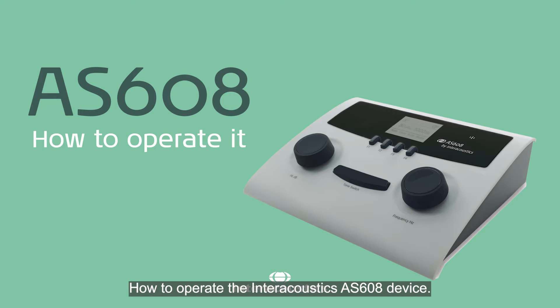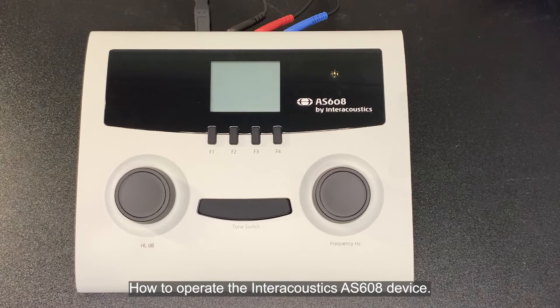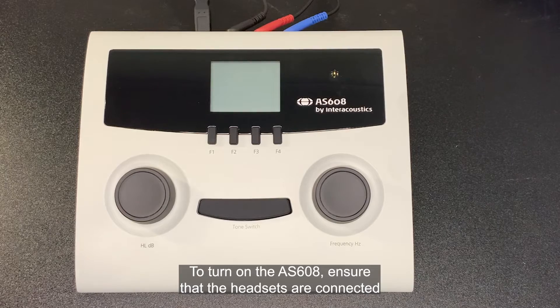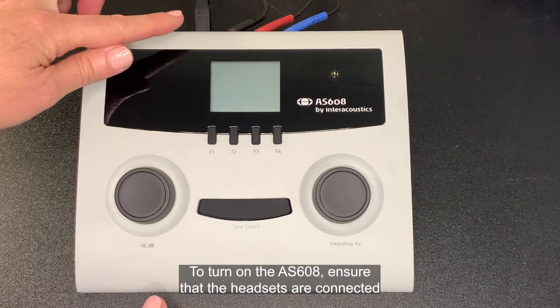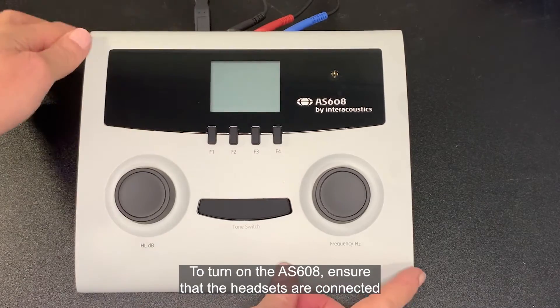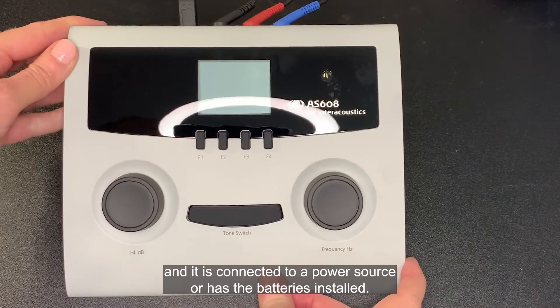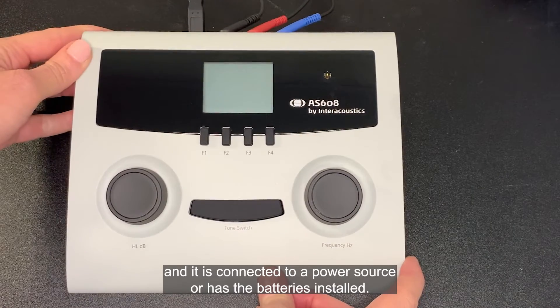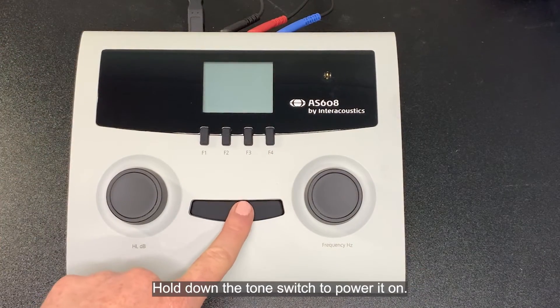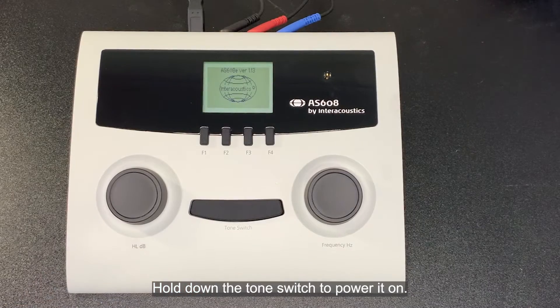How to operate the Interacoustics AS608 device. To turn on the AS608, ensure that the headsets are connected and it is connected to a power source or has the batteries installed. Hold down the tone switch to power it on.